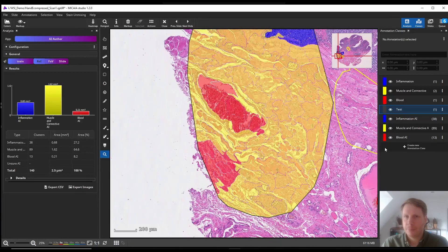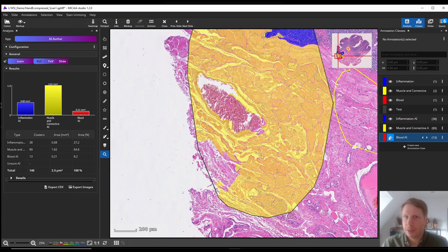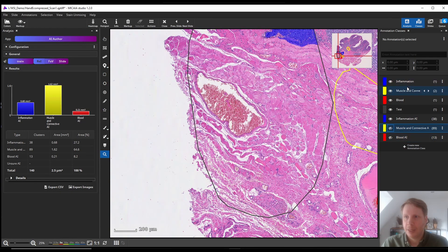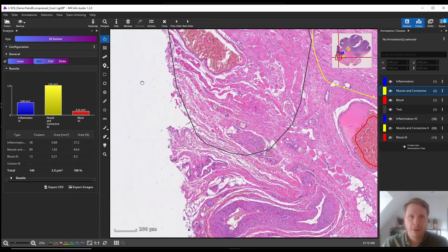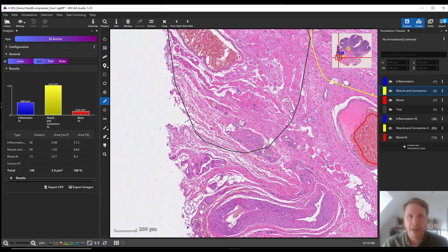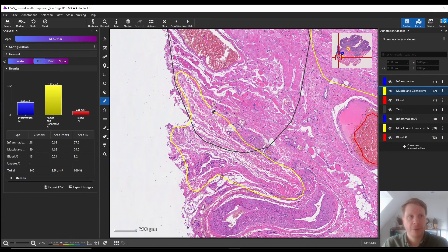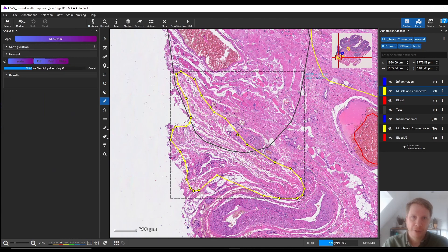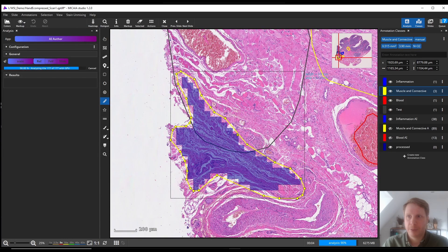You can see there's something funny going on. All in all it looks good, but at the bottom there's a region that got assigned into the blood class even though it's clearly not blood. The reason is that the AI was trained to look mainly at the texture and not so much at color, to make it robust and to work with slides from different labs and different scanners. And if you only look at the texture, you can see why it made this mistake.